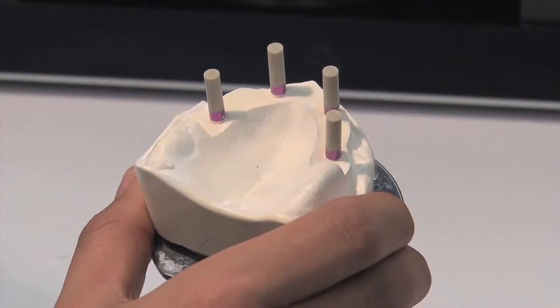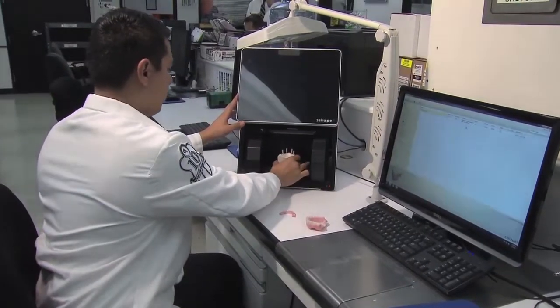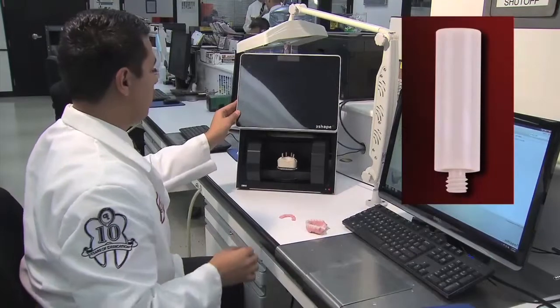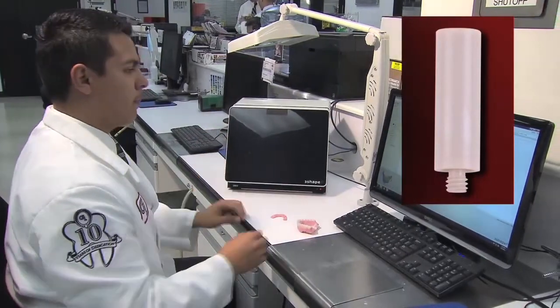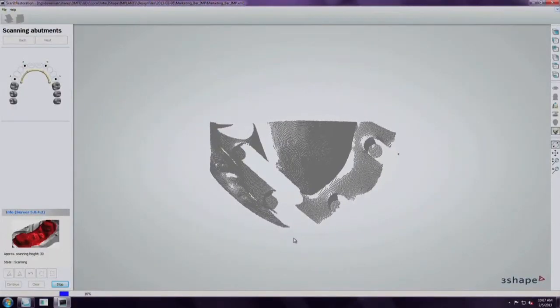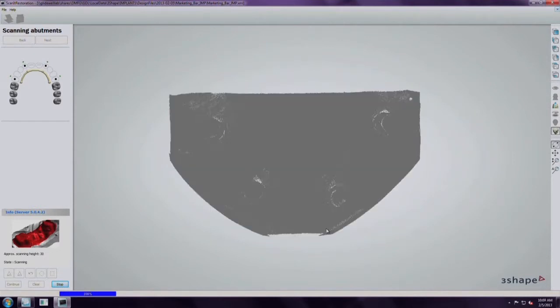The model is digitally scanned to produce a 3D virtual arch with the inclusive scanning abutments attached to the implant analogs, providing the location, angulation, and connection orientation of each implant.